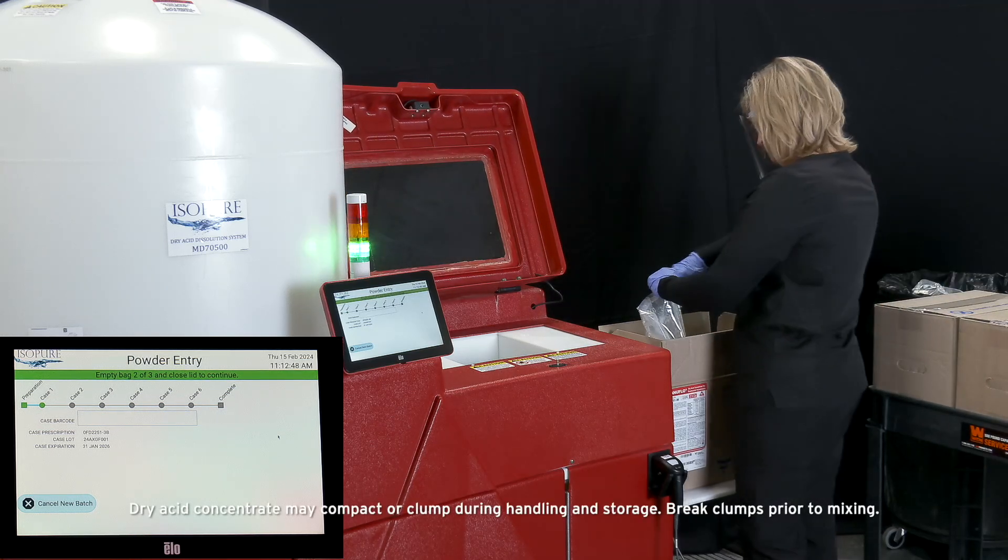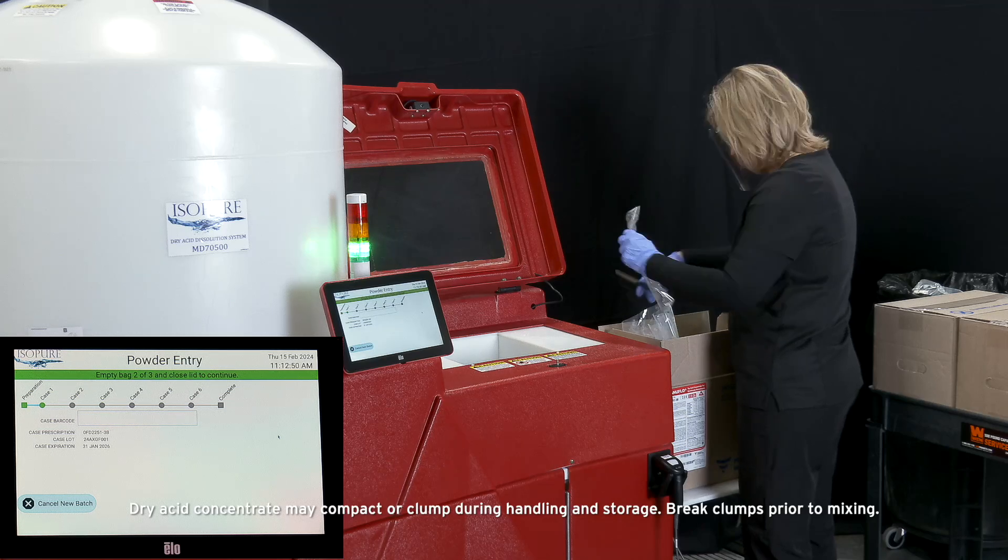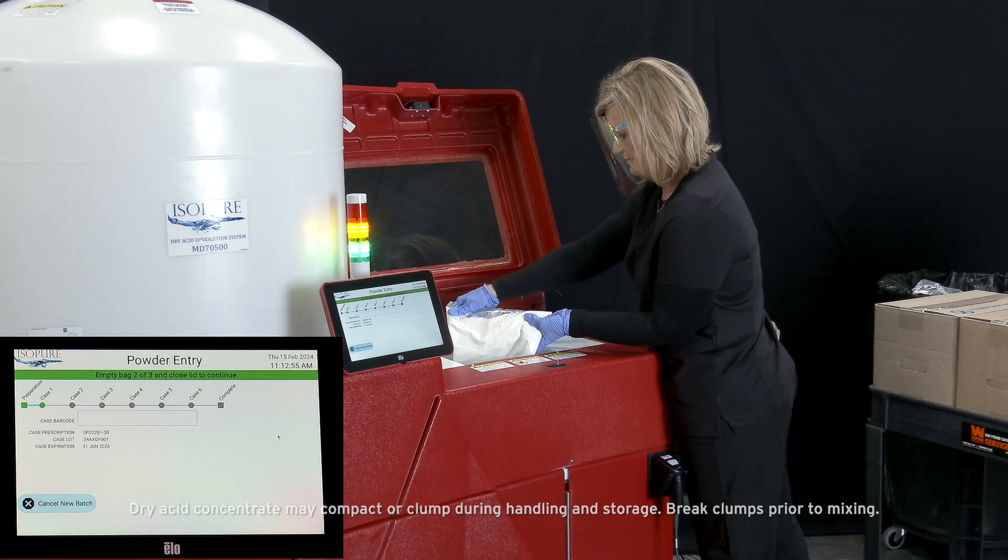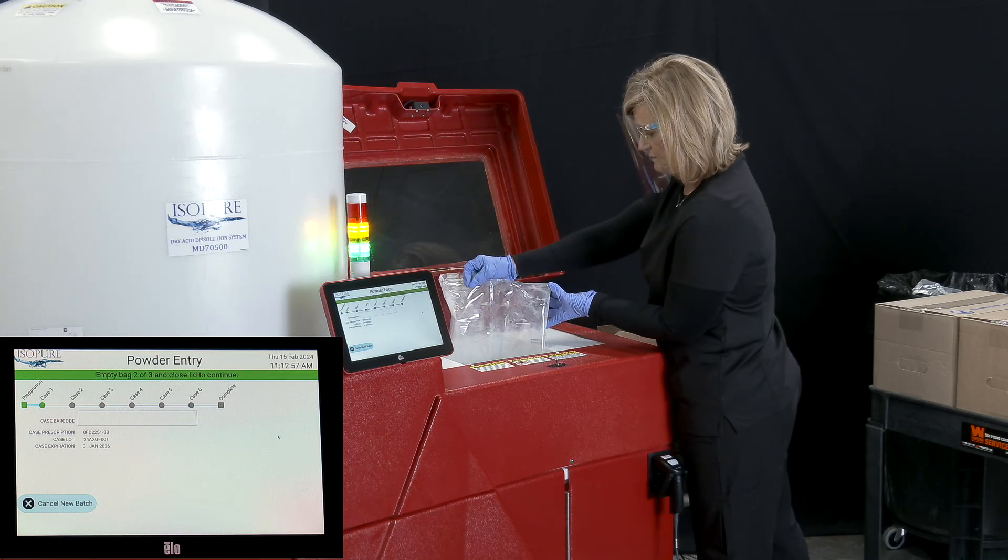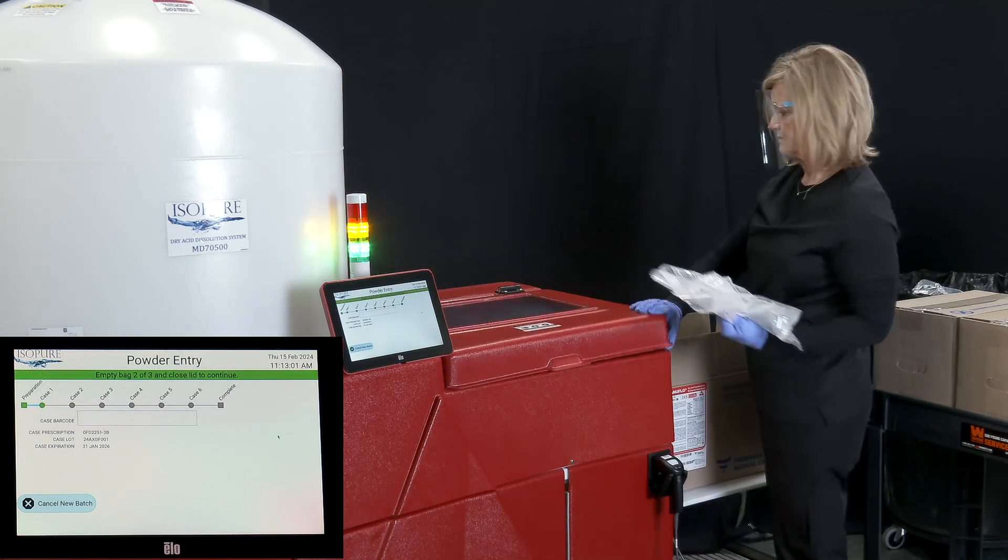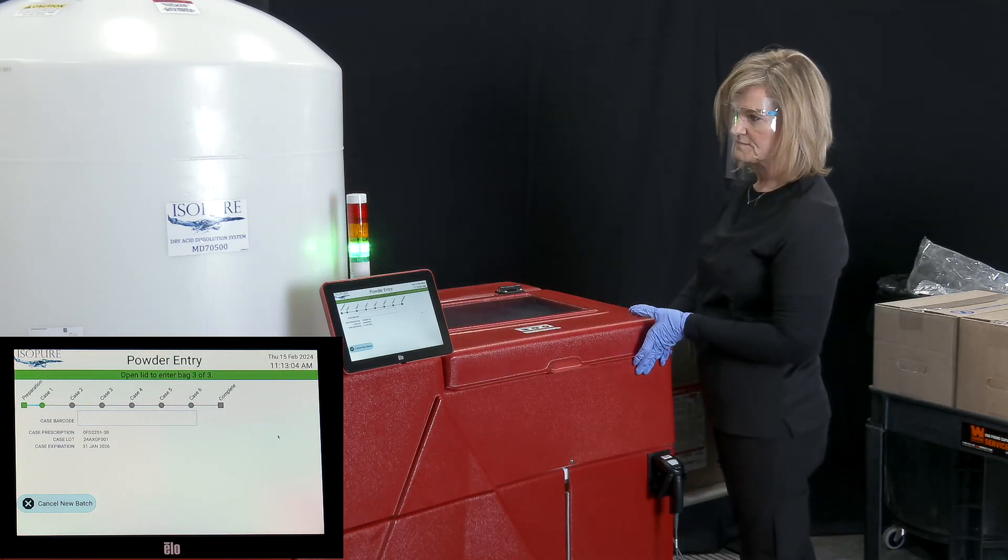Dry acid concentrate may compact or clump during handling and storage. Break clumps prior to mixing. After opening the lid, notice the message changes to instruct you to empty the bag and close the lid.